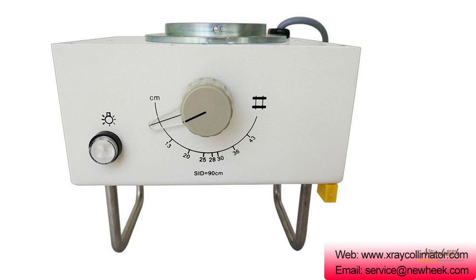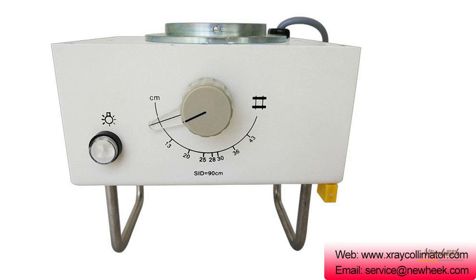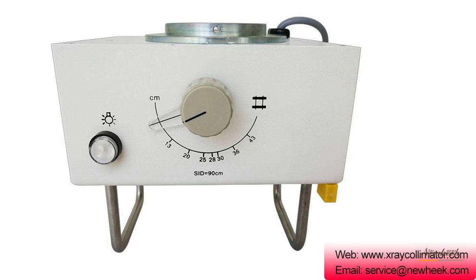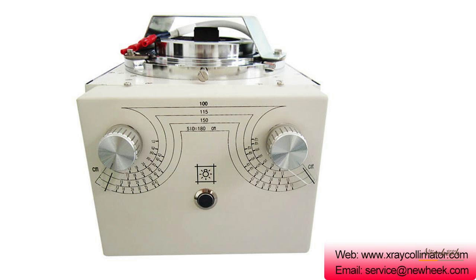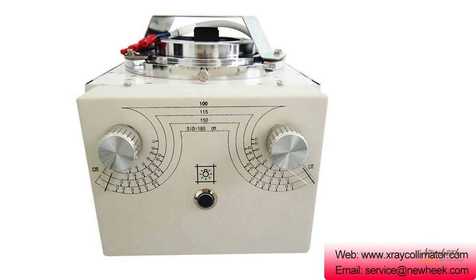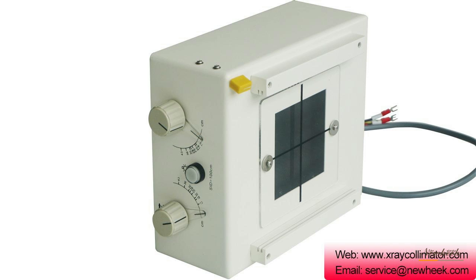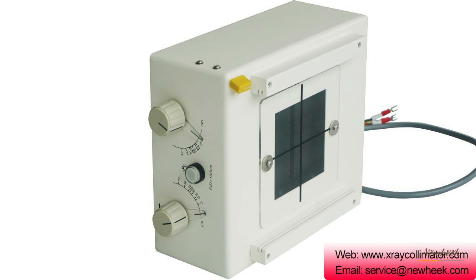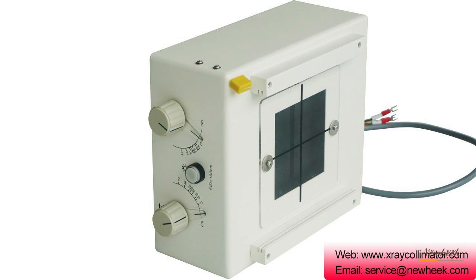An X-ray collimator is a necessary part of medical X-ray diagnostic equipment. It is installed at the bottom of the bulb ray emission window. According to diagnostic needs, the X-ray radiation range can be limited within a certain range to minimize X-ray radiation to the human body.